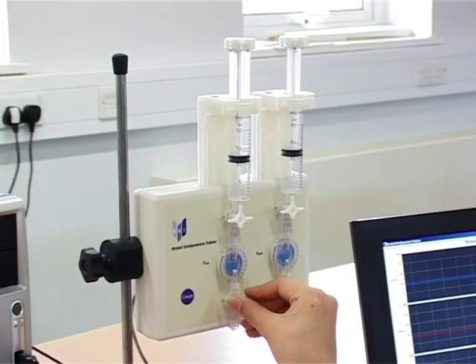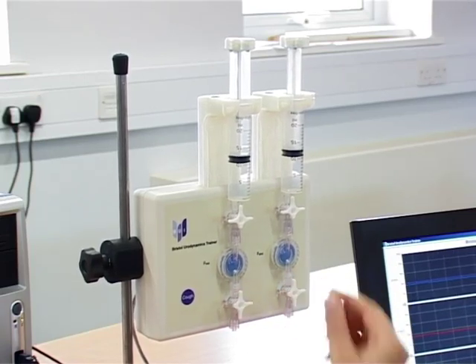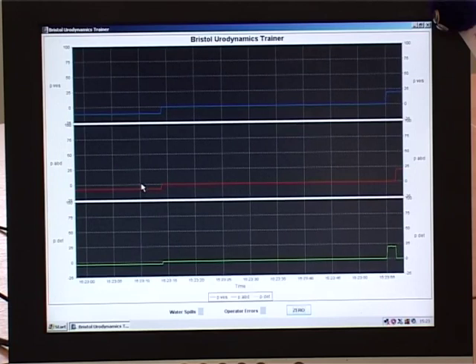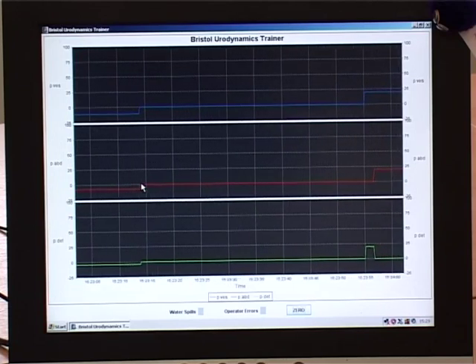For instance, when the taps are opened to the patient, a realistic patient pressure and a live signal are displayed.